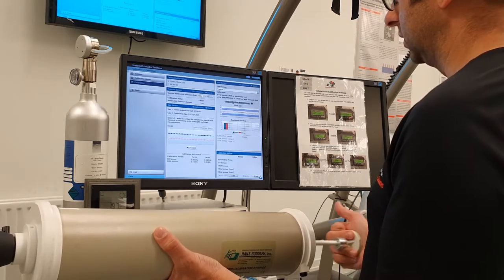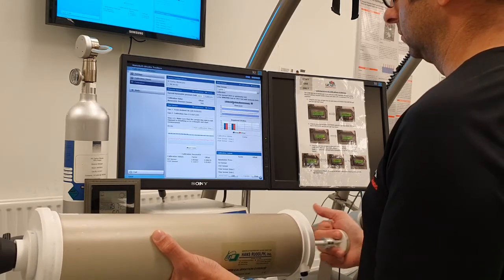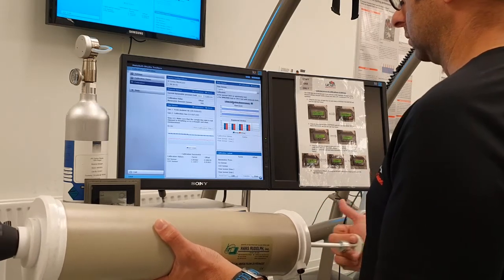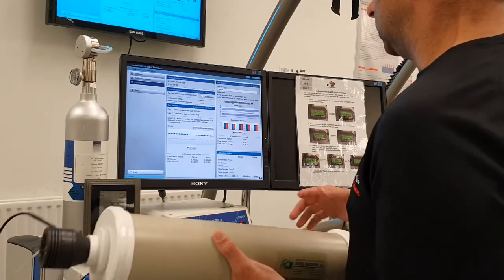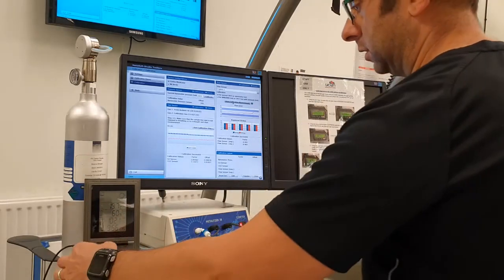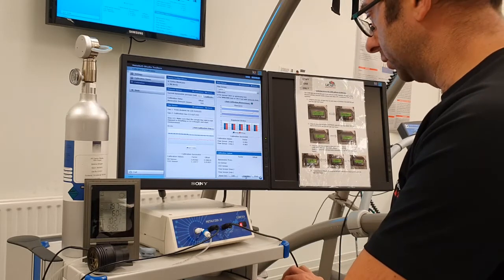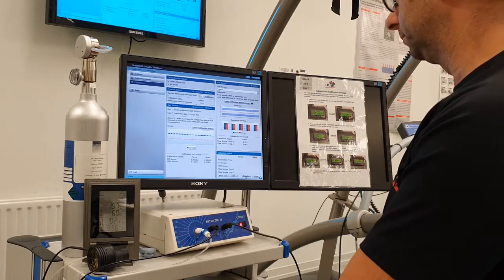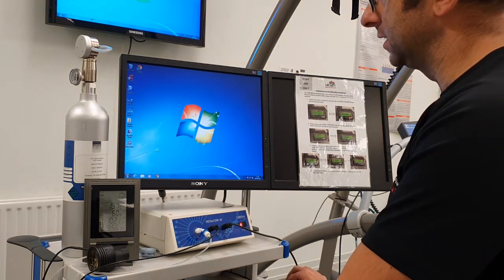Try to be very consistent with your strokes — there's one. Once that's done, take the syringe out. The only thing left to do is click Transfer at the bottom, and that will transfer all that data to the unit and we're ready for testing. Go to Exit, and to start testing click on Metasoft Studio.